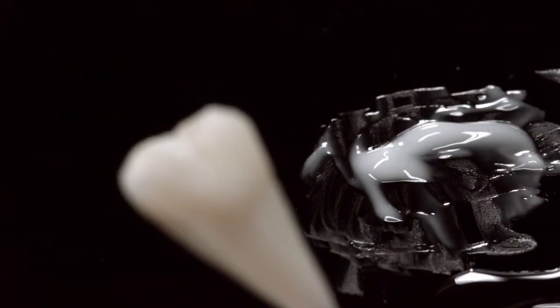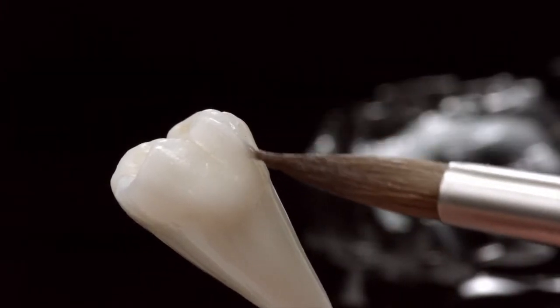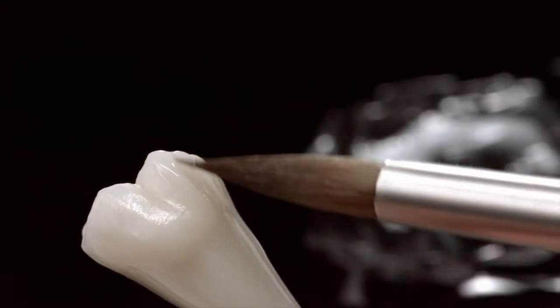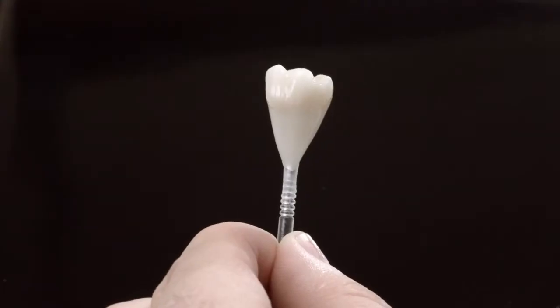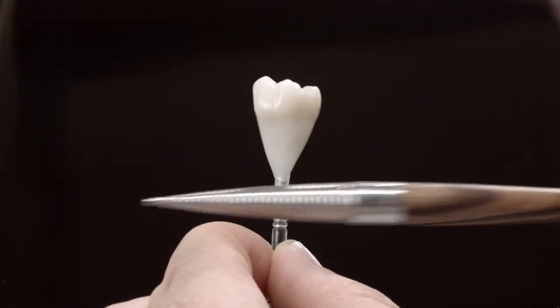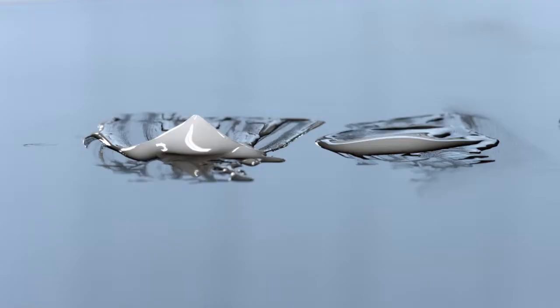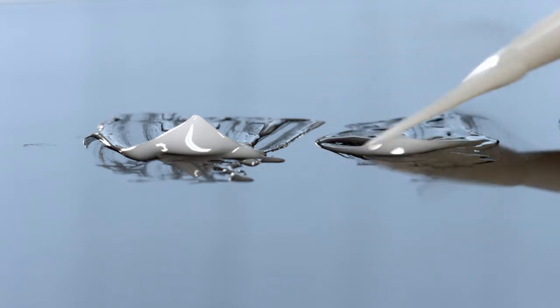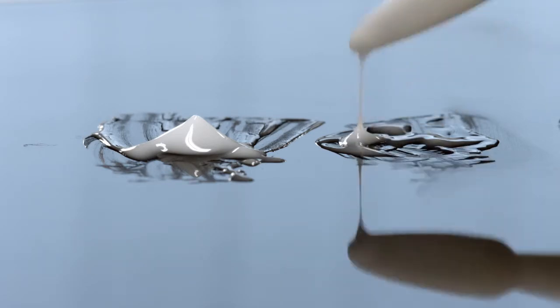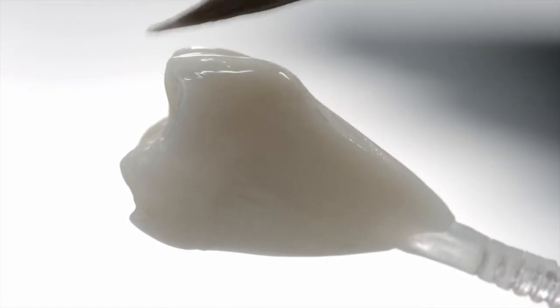Using a clean brush, apply the glaze to the restoration in an even layer. The thixotropic behavior of the glaze paste enables the application of superficial textures. If these are not desired, the glaze can be tapped smooth after application. This will create an evenly smooth surface. If you want a less glossy surface, dilute the glaze paste more and apply a thinner layer. Make sure that you do not dilute the mixed consistency any further with a moist brush.